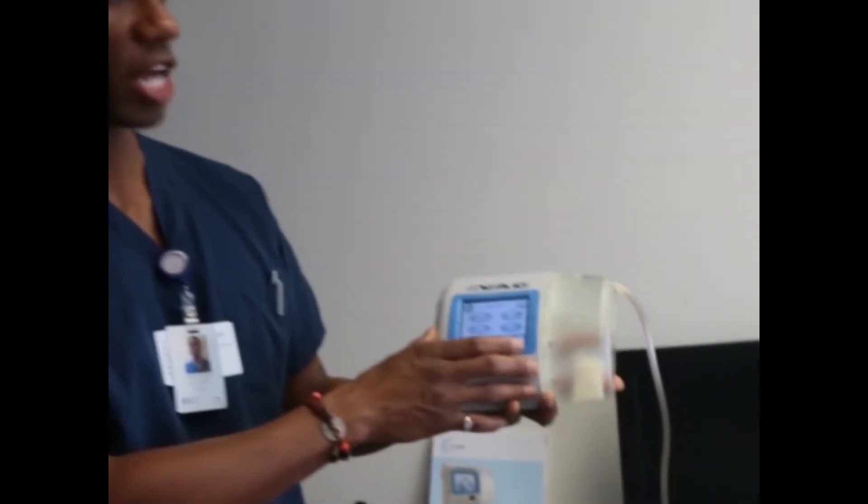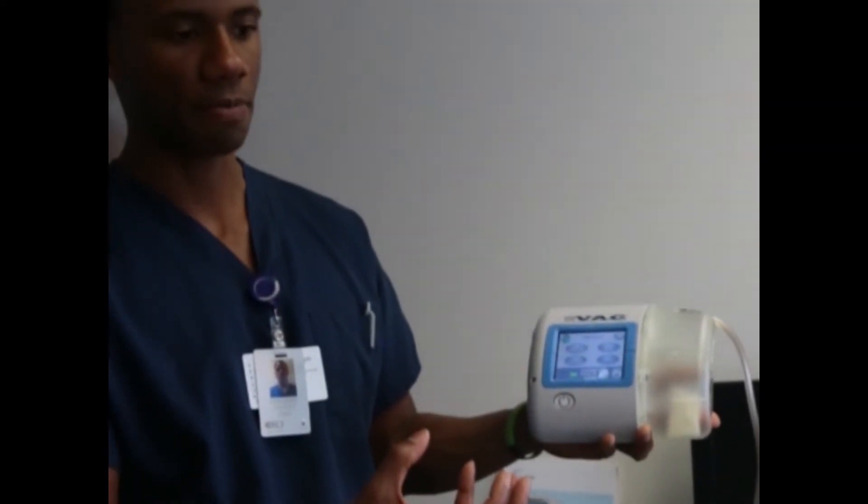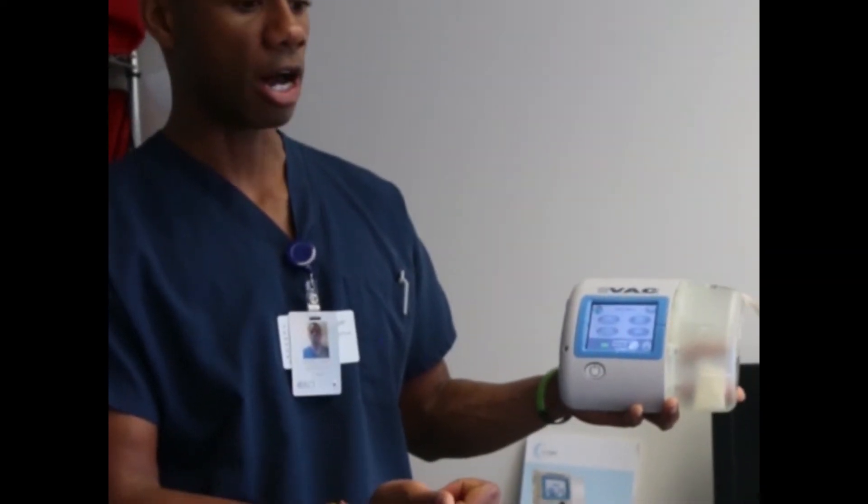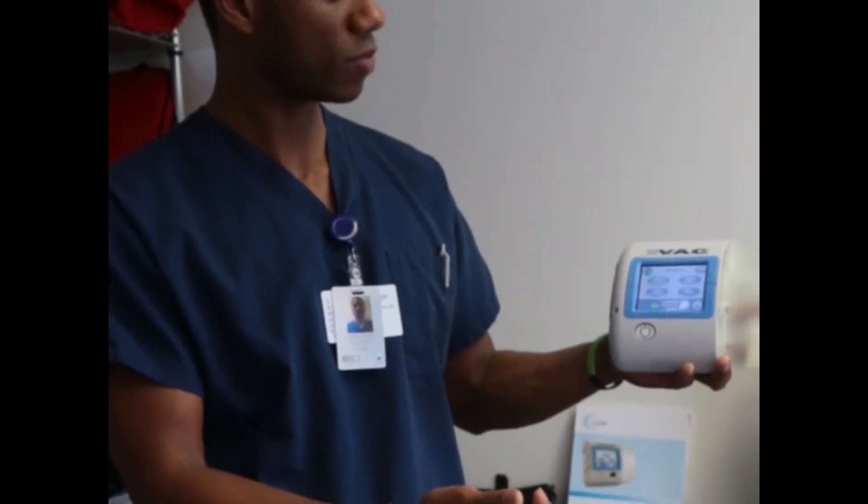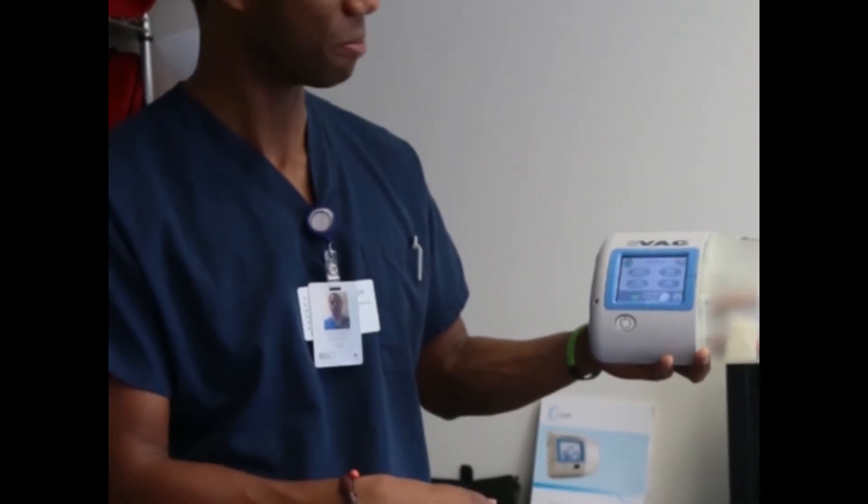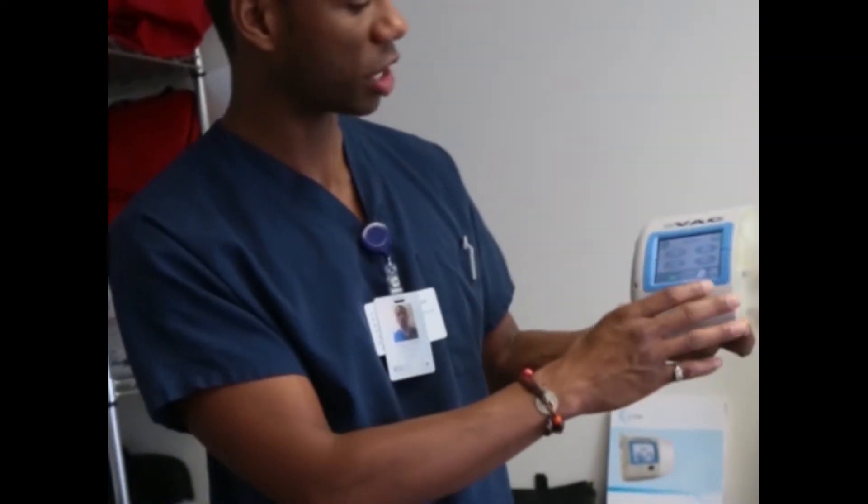Patient mode is a mode that just has less clinical options for the patient. I think it doesn't allow the patient to access things like canister changes, dressing changes, what else, adjusting the negative pressure amount. Basically, it makes it more simple so that they can't mess anything up in there. But right now we're working in clinician mode. Okay? That's pretty much it.